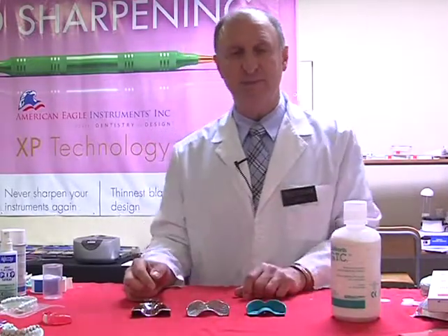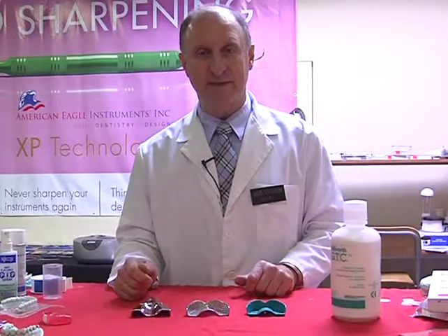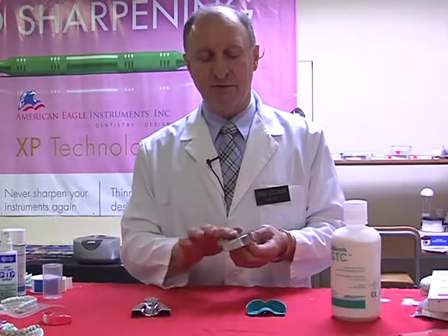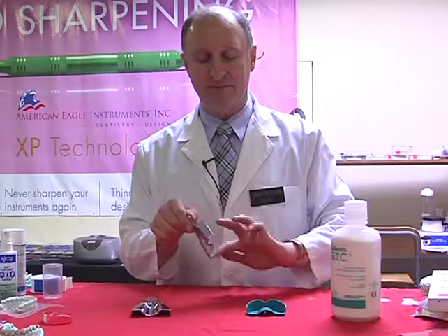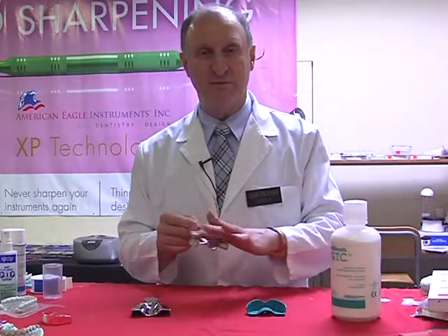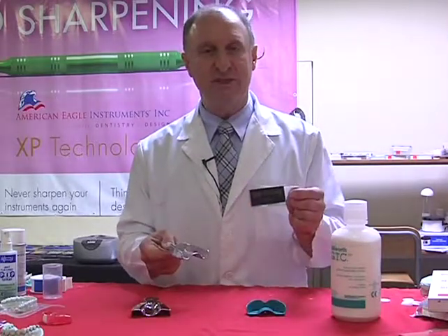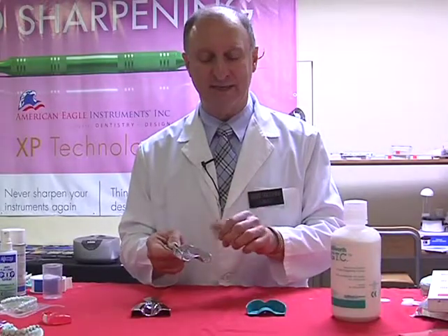So what we should normally be doing once we've removed our models, separated them, and ready to clean out the impression tray, break off all the material from the external portion of the tray. That means literally with a finger or a knife, but usually a finger's better, just literally pull off all the little nodules of the alginate away from the tray, and then it's much easier to pull out the impression material that's caught inside here.